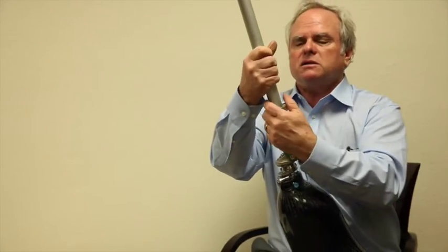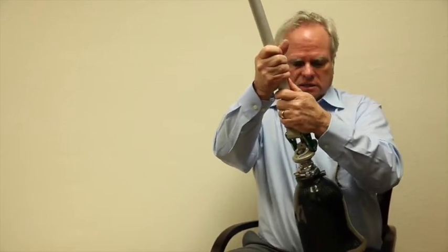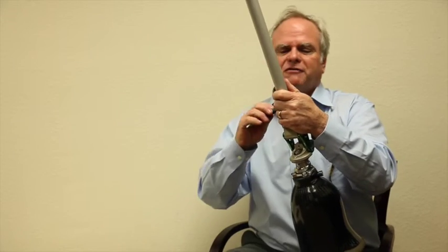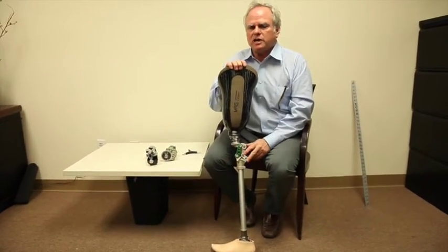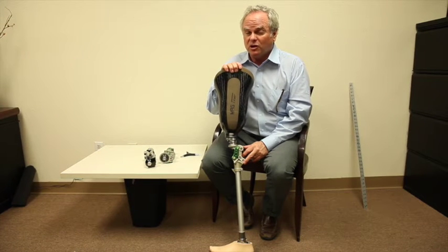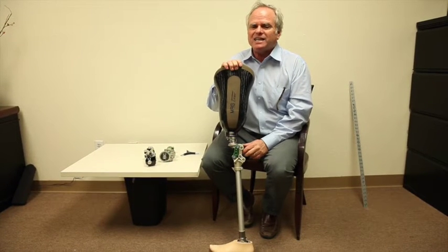All of these things is for your benefit for your patient. I'm calling this knee the new standard in safety knees. It has a major advantage over the knees that we call standard and safety knees. Those knees are a frictioning device.